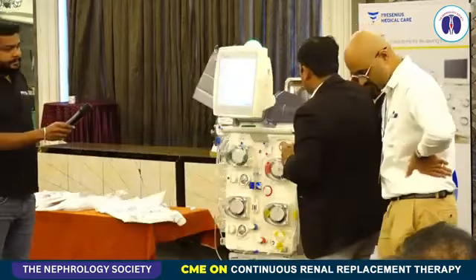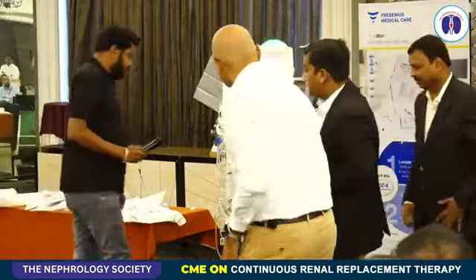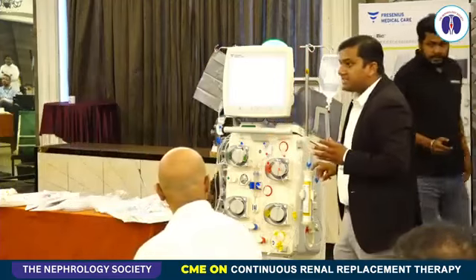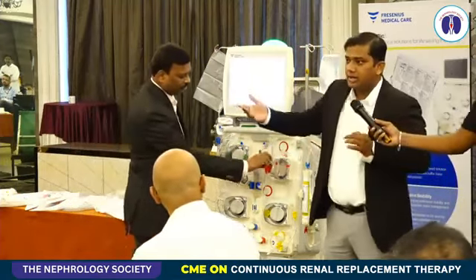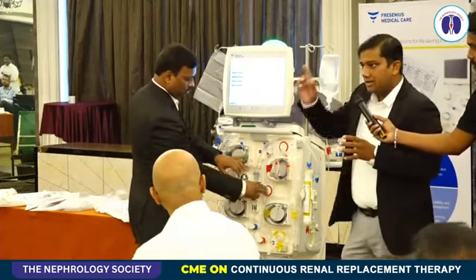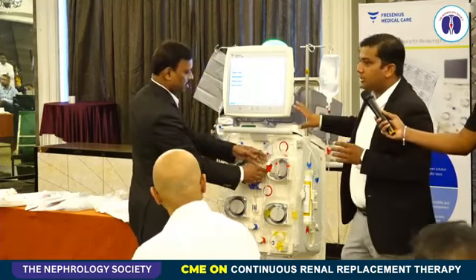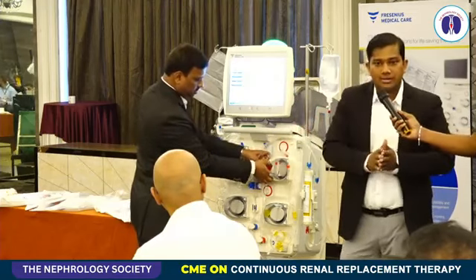So this is not the low flux. It's basically ultra flux, more than high flux. The basic difference between this filter and an ordinary high flux filter is that the pore size in this filter is bigger, but the number of pores is lesser, because the agenda in CRRT is basically to remove the molecules in a slow and gentle manner.